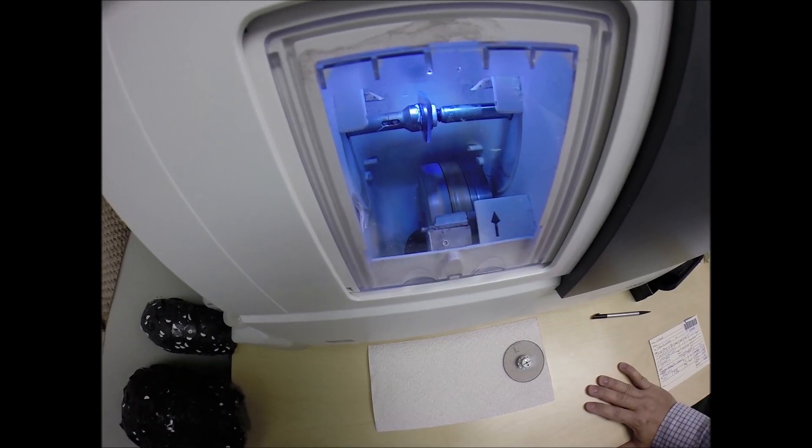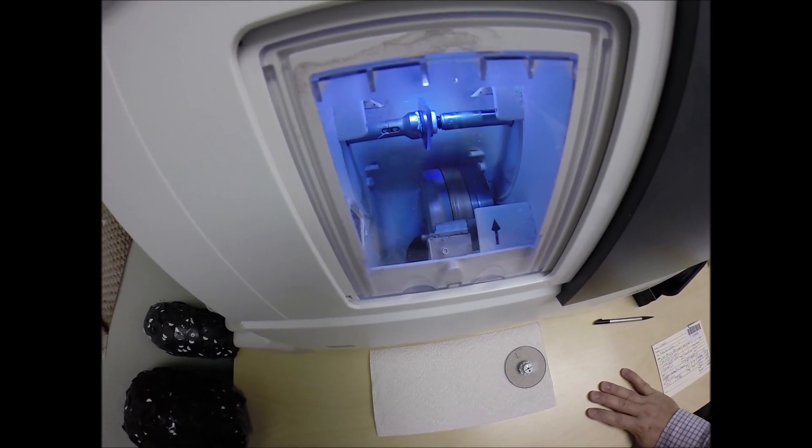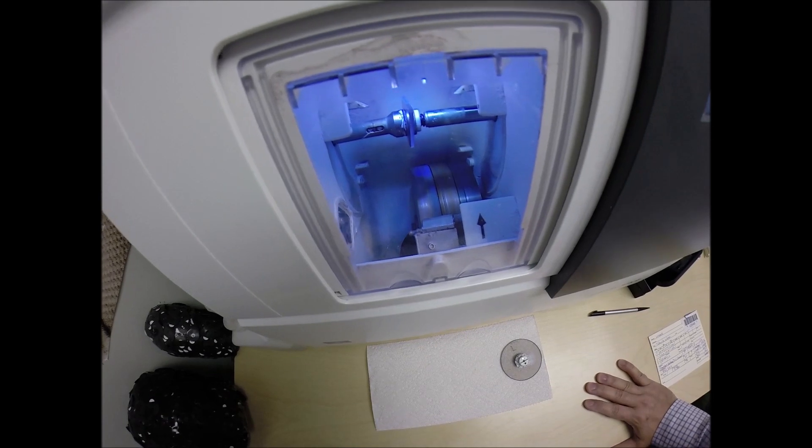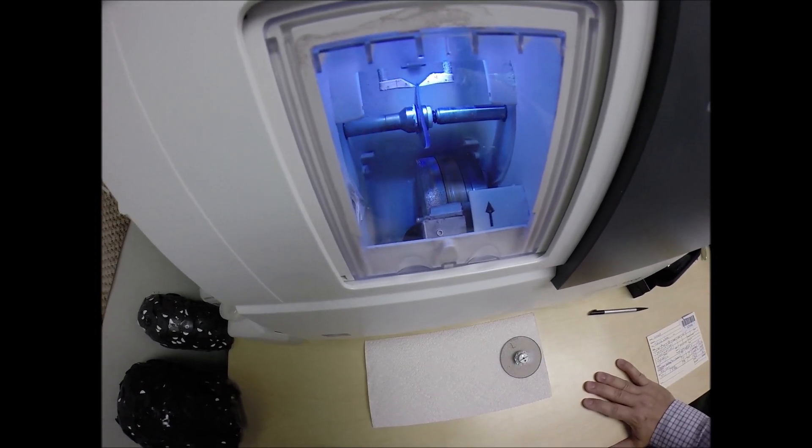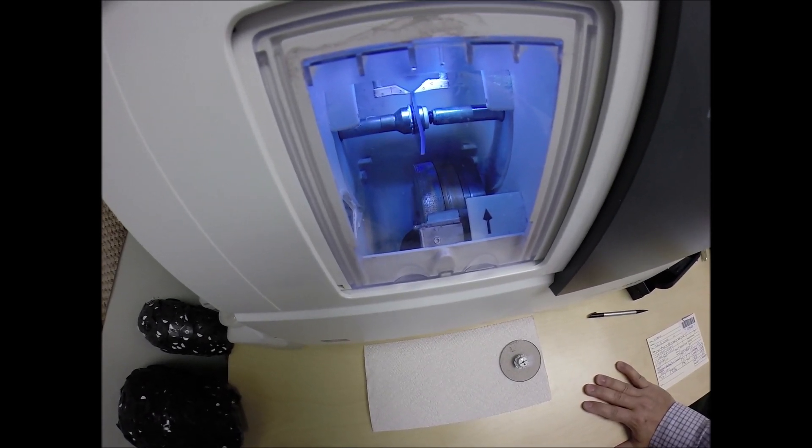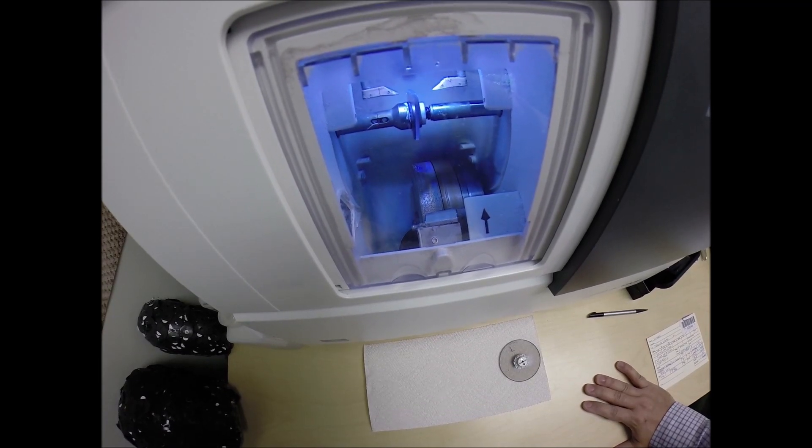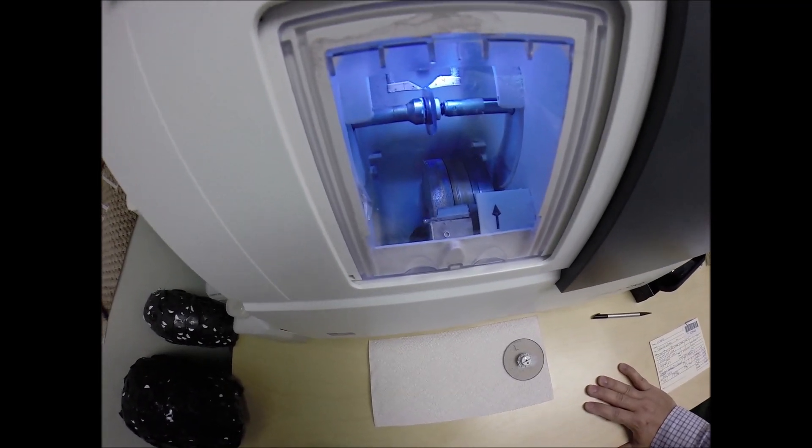Zeiss offers the most complete UV protection. That's why they partnered with the American Cancer Society because of that. Now we know what the sun's harmful ultraviolet rays can do to your skin. Your eyes are 8 times more sensitive than your skin so you have permanent sunscreen unlike the lotions, creams, and sprays that have to be reapplied every couple hours when you're in direct exposure to the sun there in Tukwila, Washington.